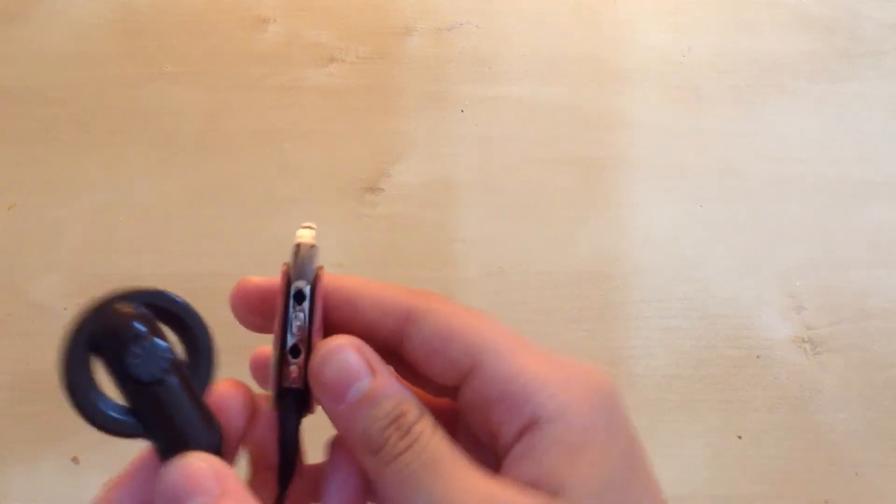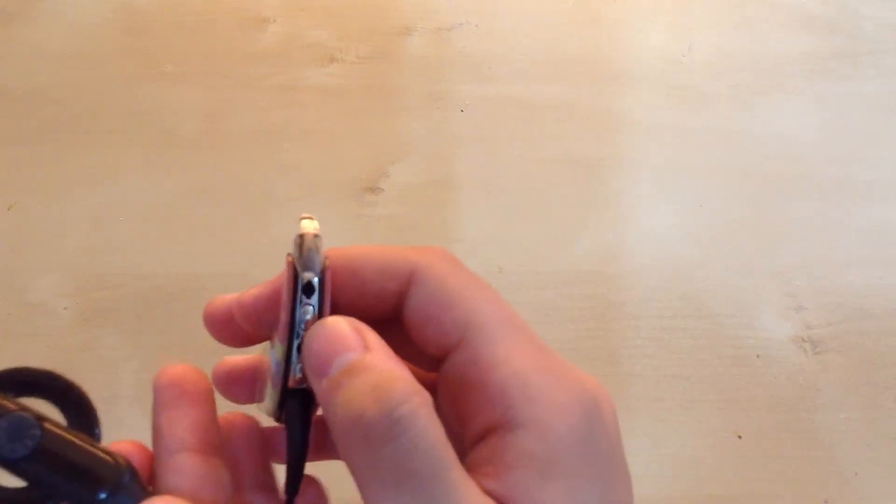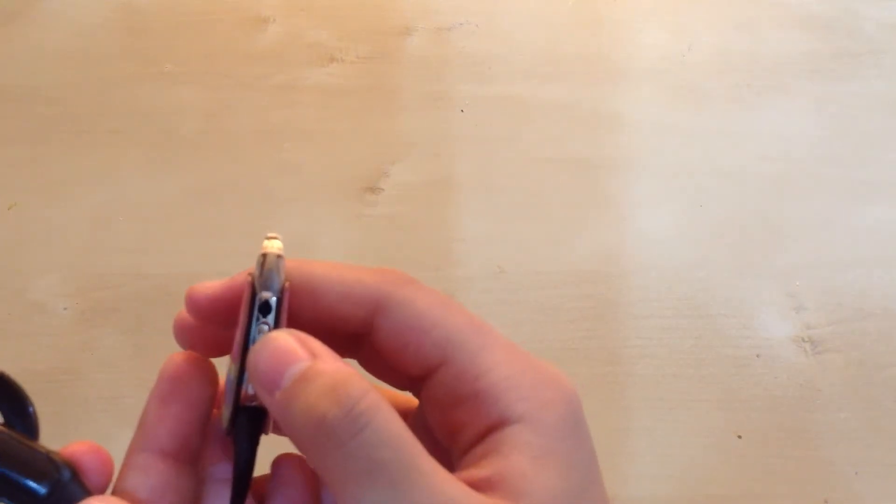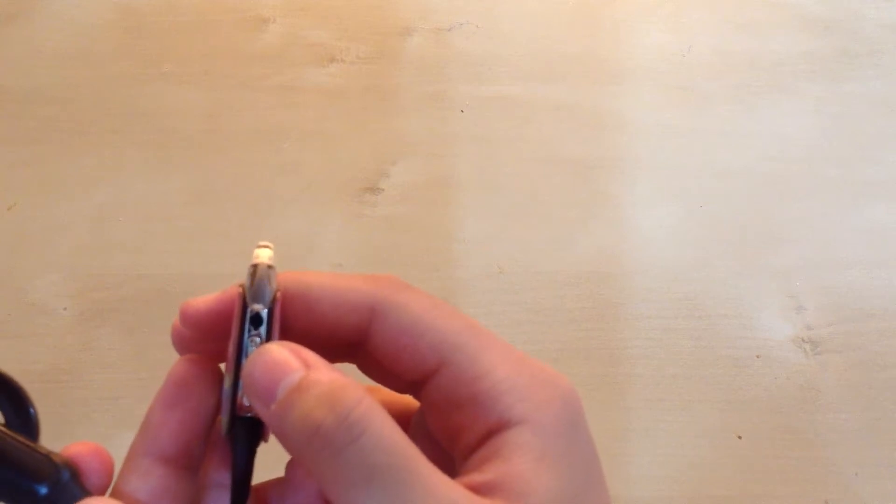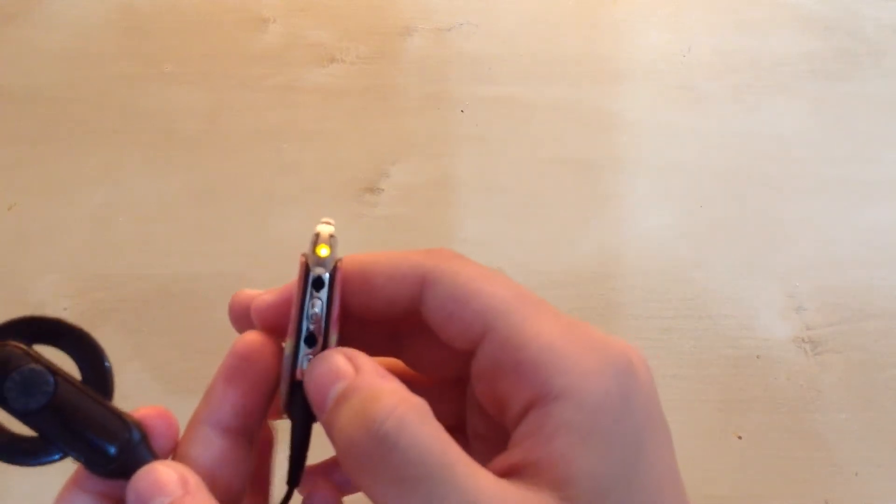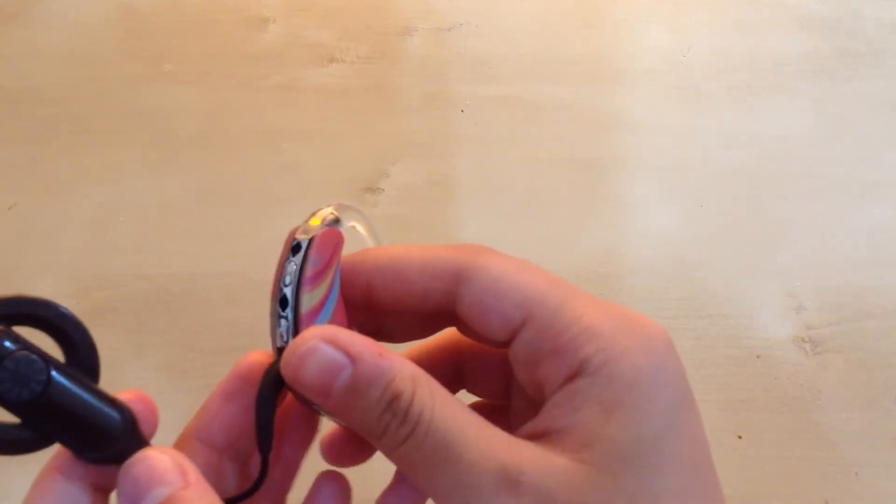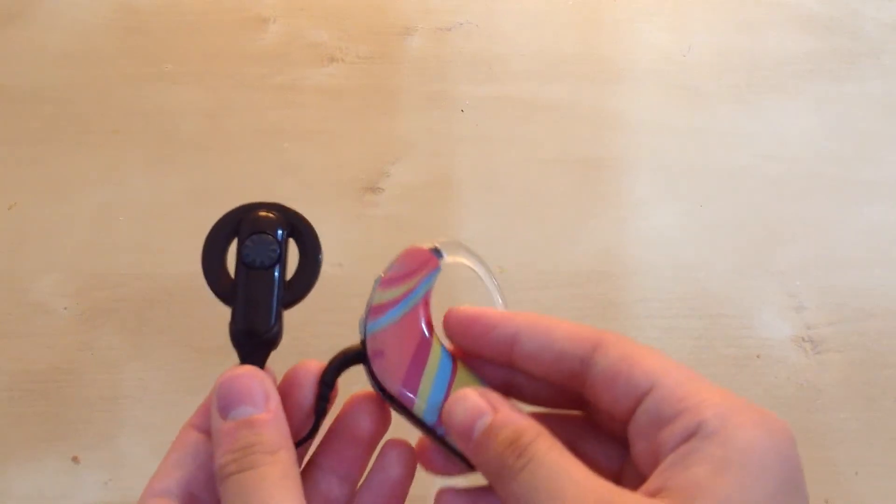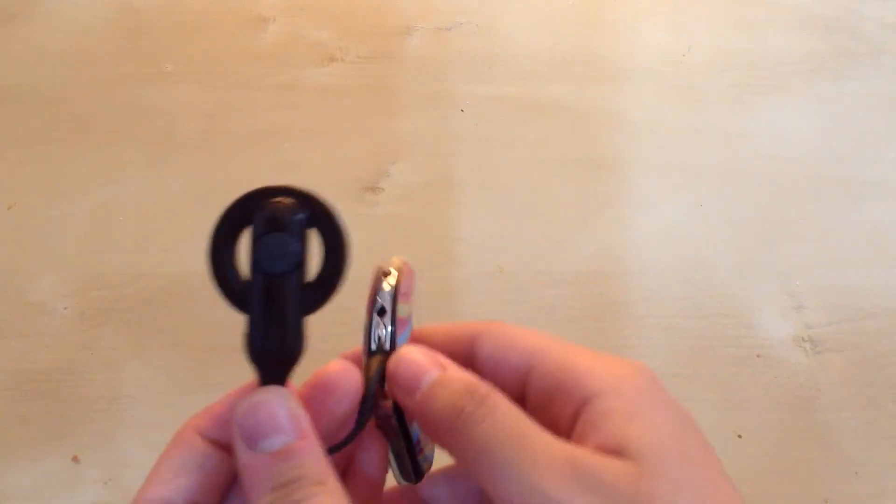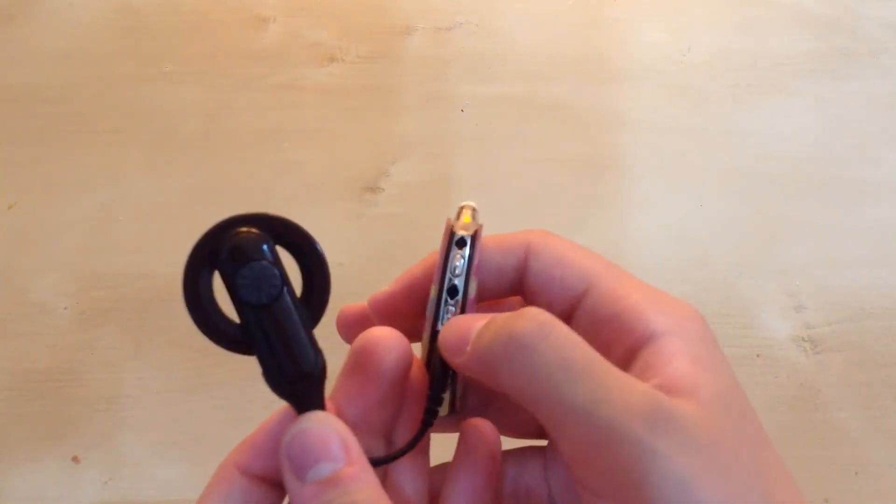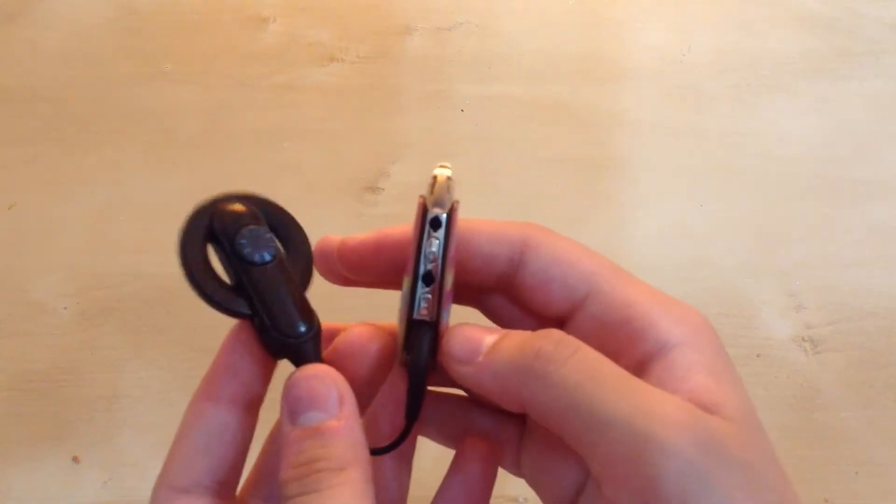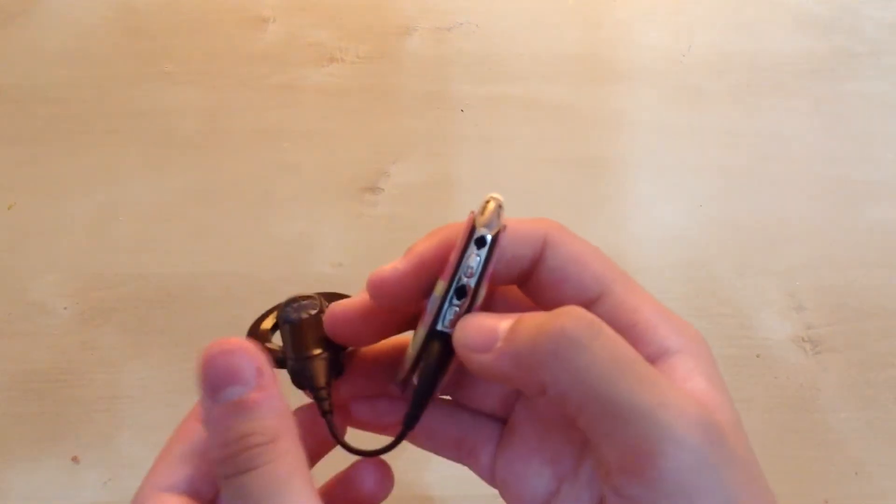So I'm just going to turn it off because I don't need it on. To turn off the processor, it's the same way as to turn on the processor. We just have to keep holding it down for three seconds. But first I want to just tell you guys something to make sure you understood.